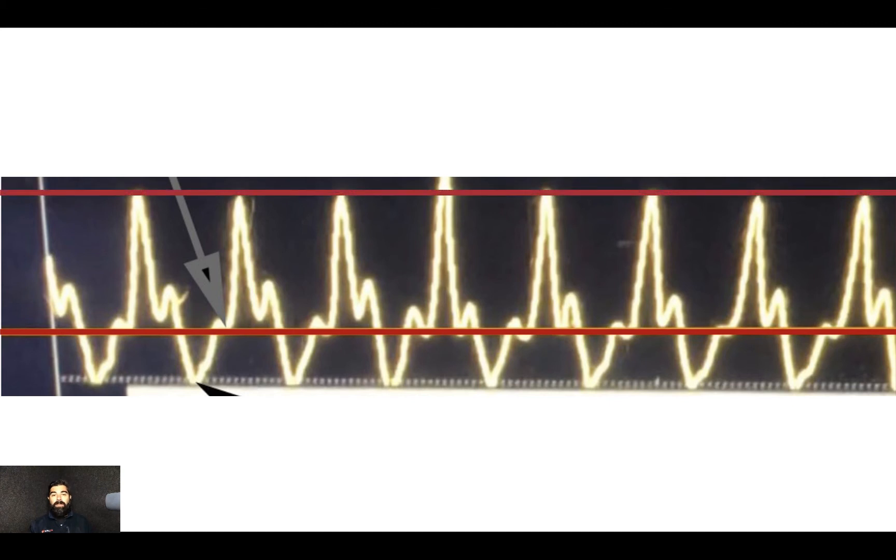So at the top of this waveform that's our systolic blood pressure. That's great. But the bottom of this waveform is actually the negative intrathoracic pressure from recoil from the chest compression letting up off the chest.